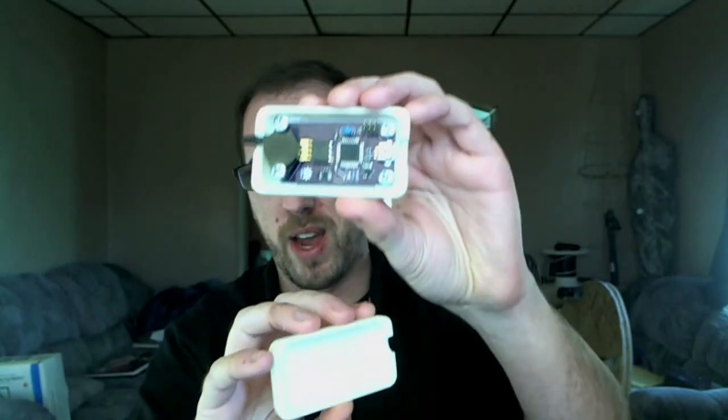This 3D printed case houses a circuit board that I've designed. On one end of the device is a pressure sensor. This allows you to connect a long vinyl tube that you can find at any hardware store from the device to your mouth. The other end contains a USB port so that you can connect the device to your computer.